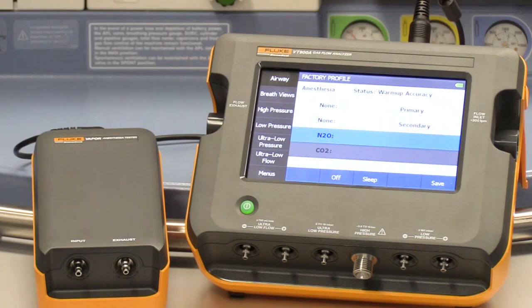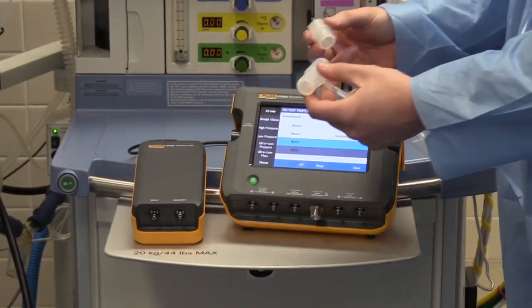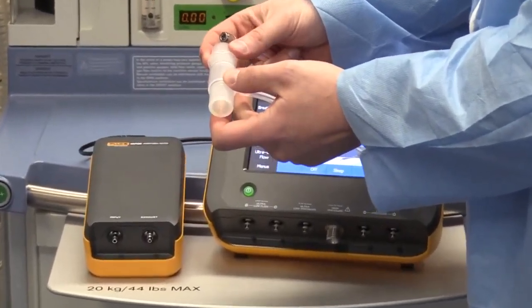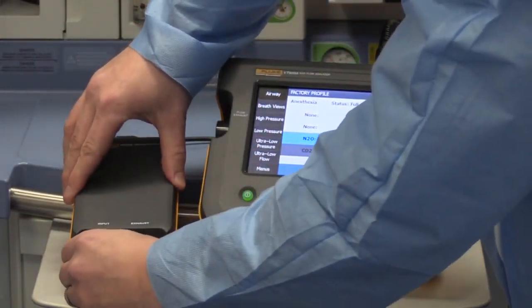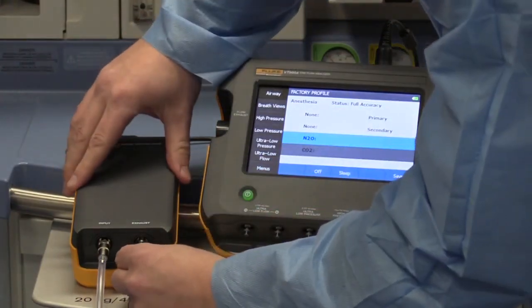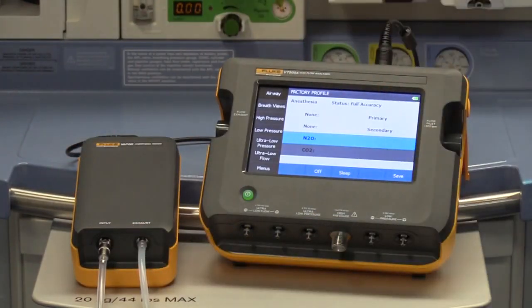You will need to take your accessory tee and attach it to the fresh gas outlet using either the 15 or 22 millimeter connections. Attach the other end via the quick connect to vapor. You may have your own proprietary fittings and be able to attach the accessory tee directly to the common gas hose. Make sure to connect the exhaust end to the anesthesia gas scavenging system. Do not send agent through the VT900A as it can damage the sensors in the analyzer.